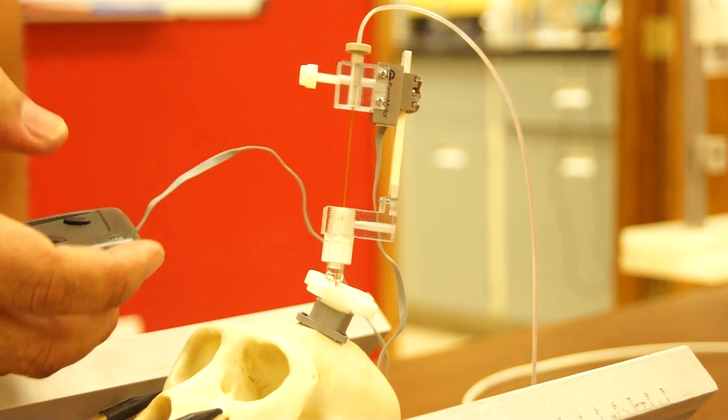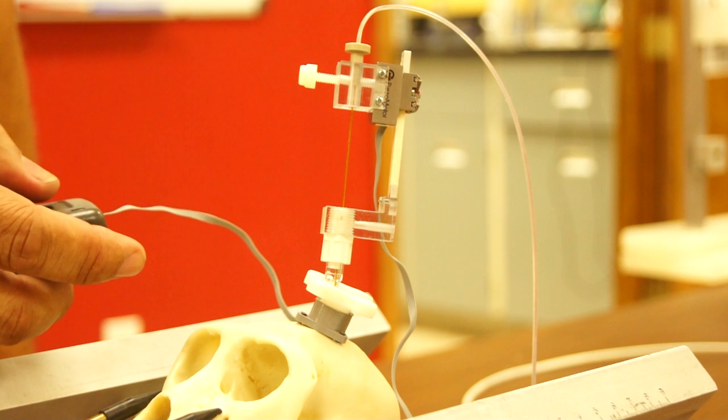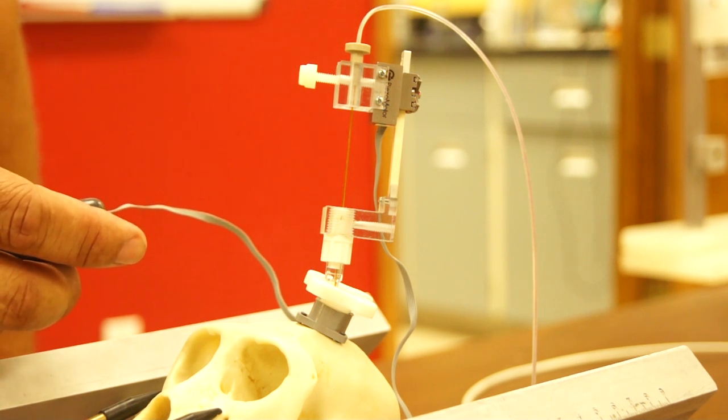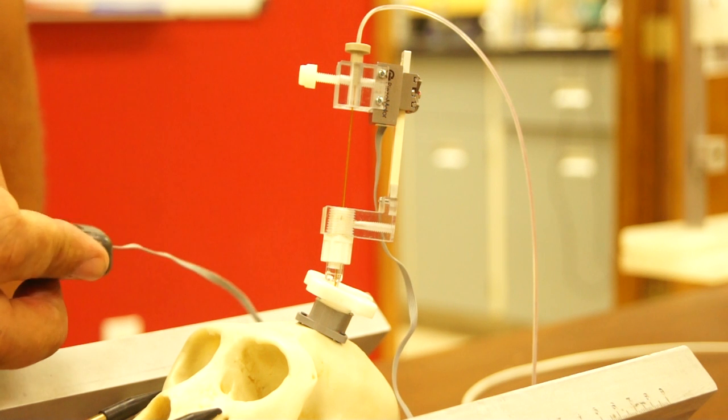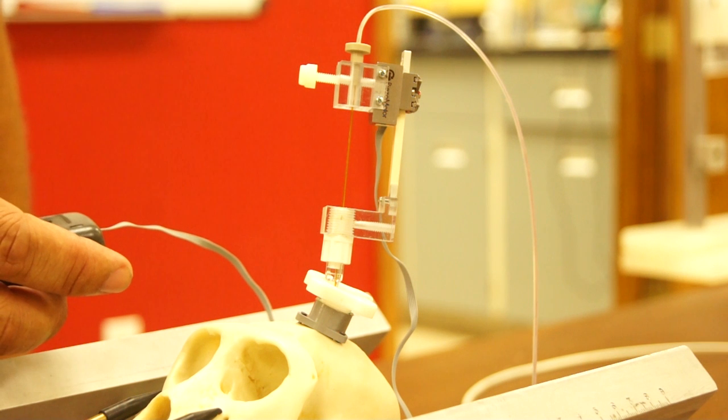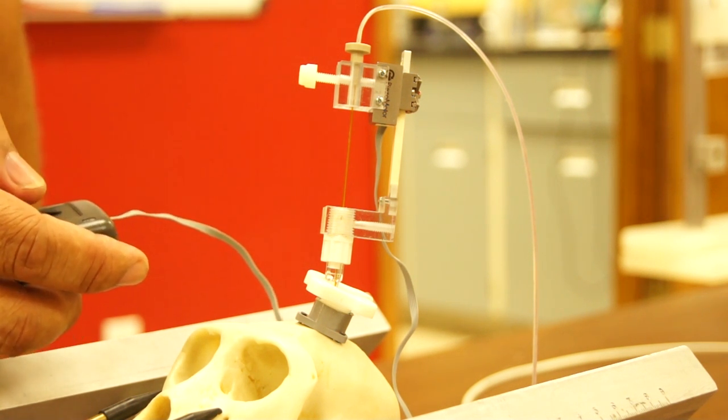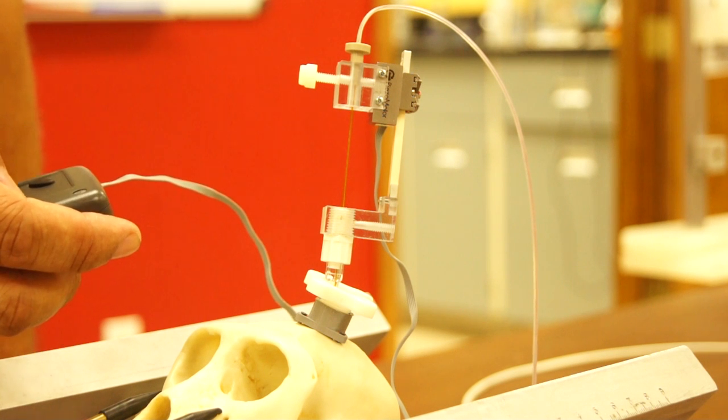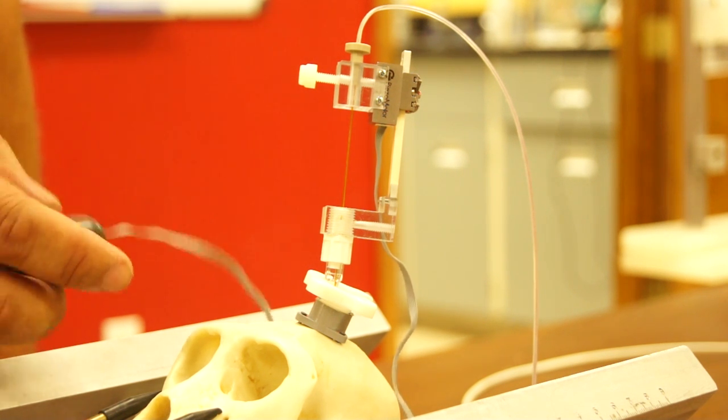We're working on our own electronics that will allow us to select a rate of insertion and also a distance. In addition, there will be a manual override that will allow the surgeon to use a jog wheel to manually advance or retract at his own rate while observing on the MR.